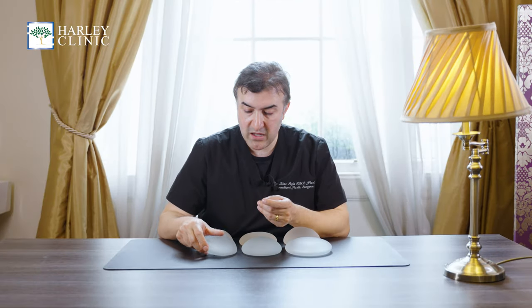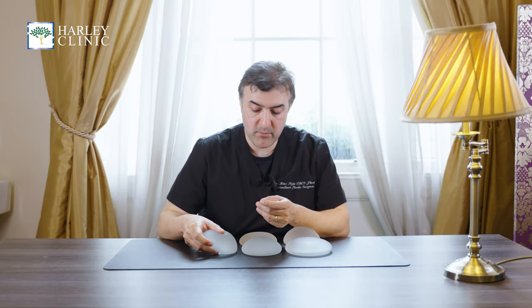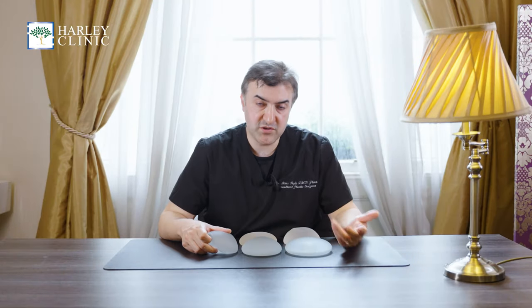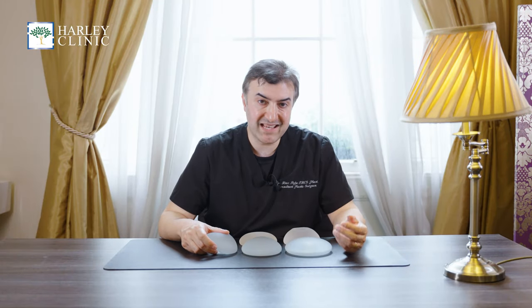We tend to use saline or saline-chambered implants more for expansion of the breast over time by introducing more and more saline, and that's what we call an expander. So those are the main kinds of breast implant characteristics.